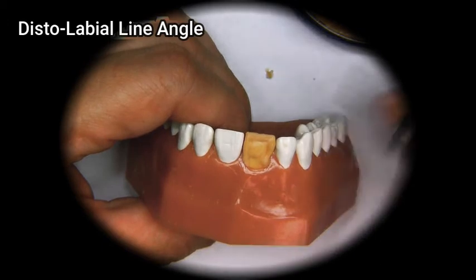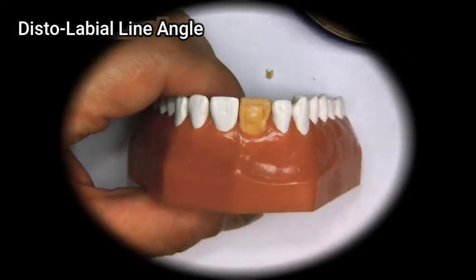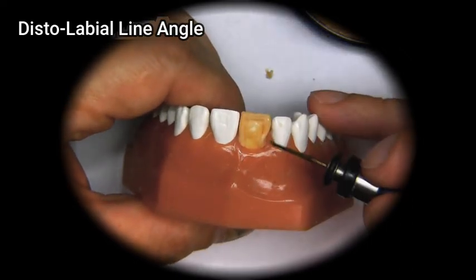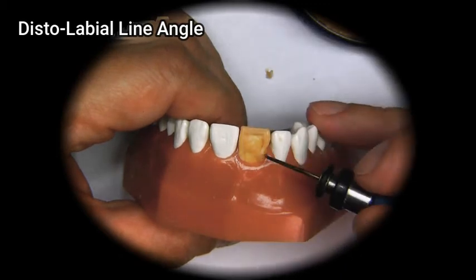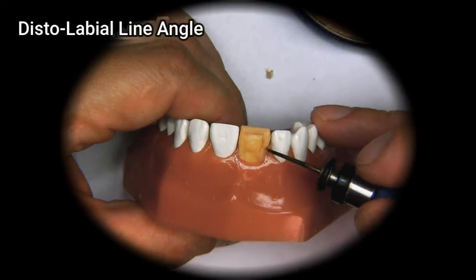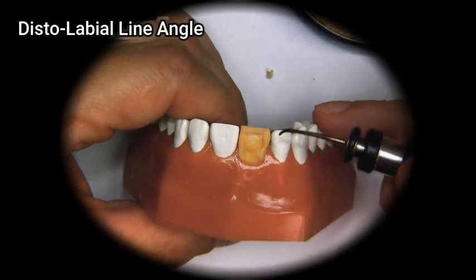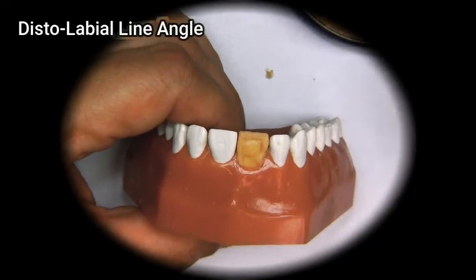When we go step by step like this, it creates a framework for us to build the tooth on, instead of just building up a big glob of wax and trying to carve it back down to mimic the shape of the adjacent tooth.